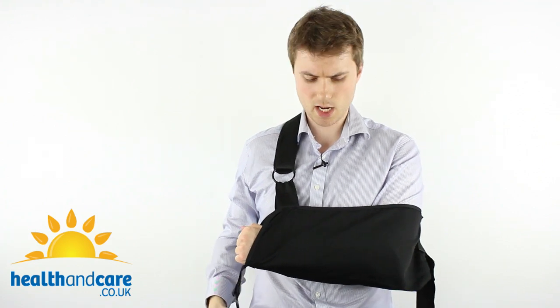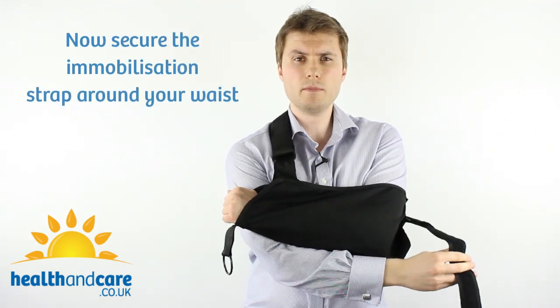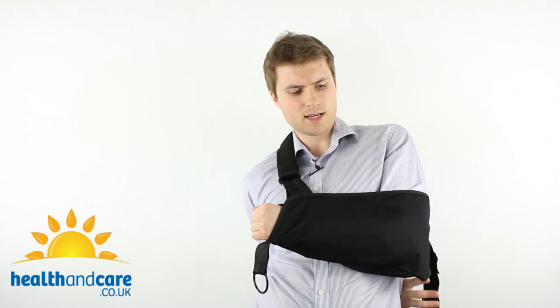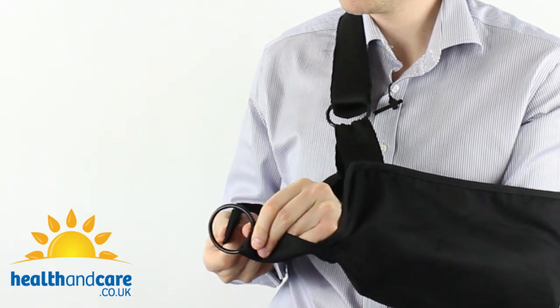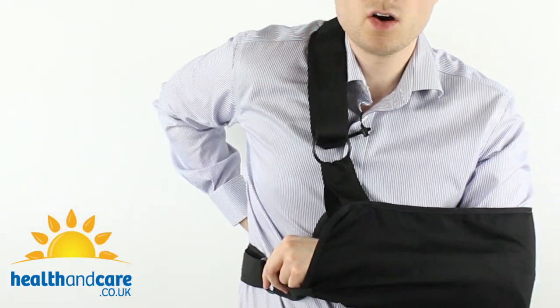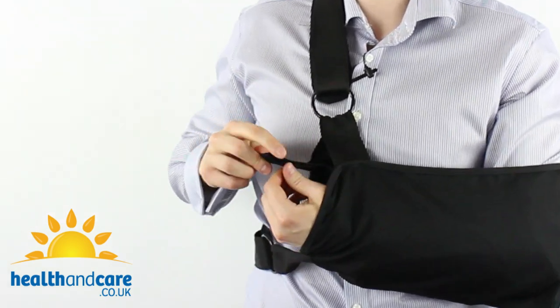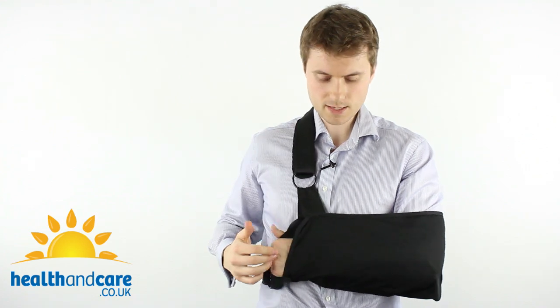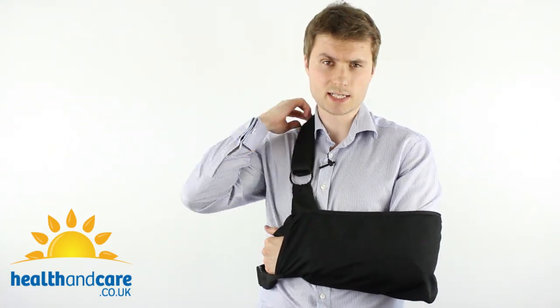The sling is now taking shape. Bring the immobilisation strap around your waist like a belt. There's another round plastic ring near the wrist — thread the strap through it and double it back on itself with the velcro. There's a thumb loop to put your thumb through, and then adjust the sling to make sure there's no gathering of material. To change the elevation, simply undo the velcro and reattach it anywhere on the strap. Tighten the waist strap as needed.